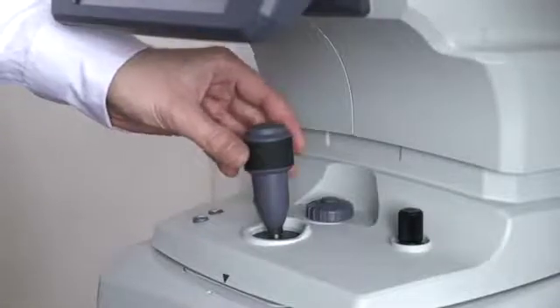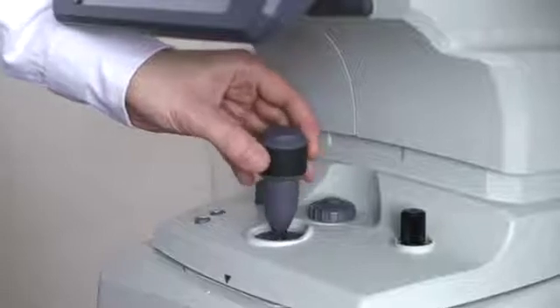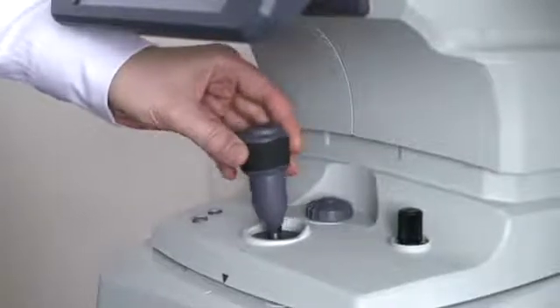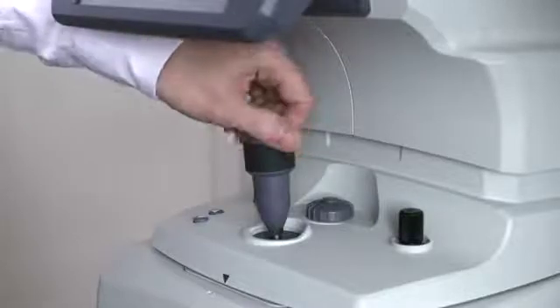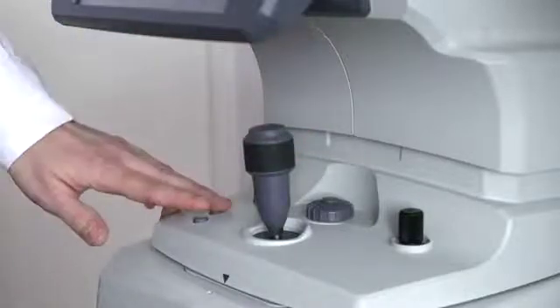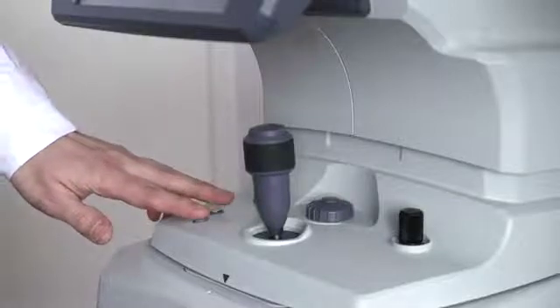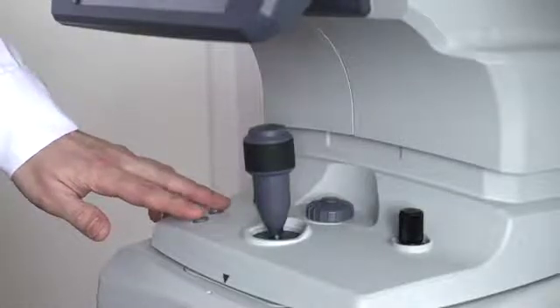The joystick is used to move the device left, right, forwards and backwards, and then by rotating the joystick moves the device up and down. We also have the chin rest adjustment buttons here to move the chin rest up and down.